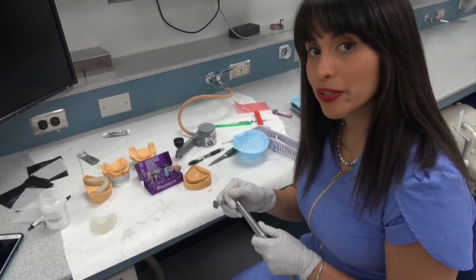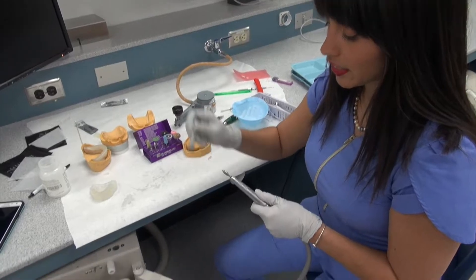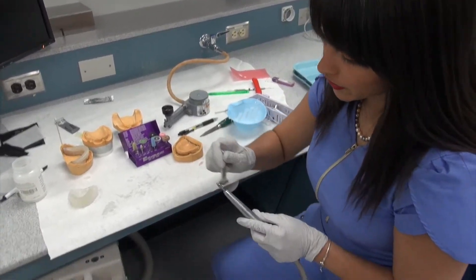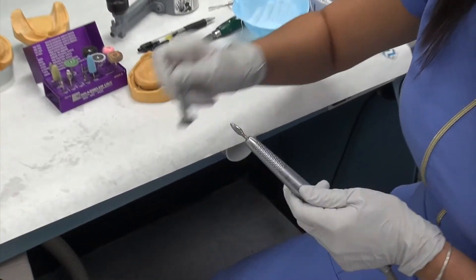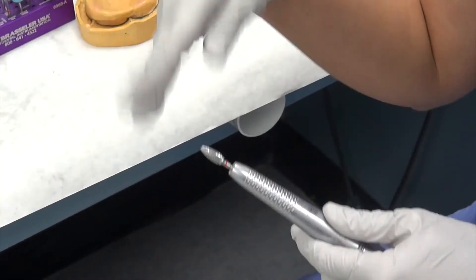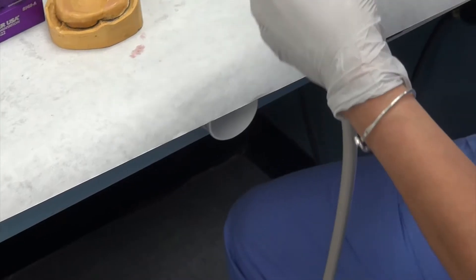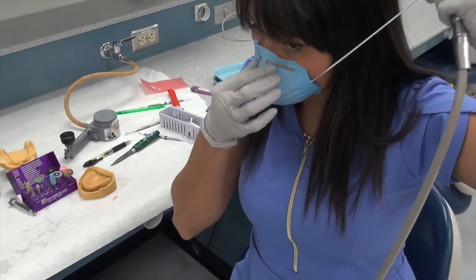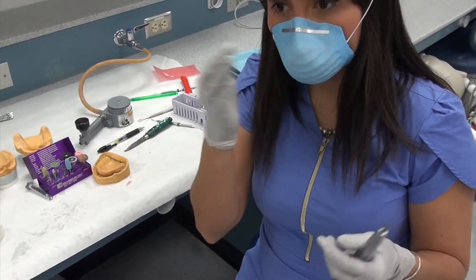Sometimes your burr will get all clogged up. This is in your expendables kit from your first year, and you can use that to clean it off. After each time, you're going to get real dirty. You'll always want to wear your protective equipment and eyeglasses.